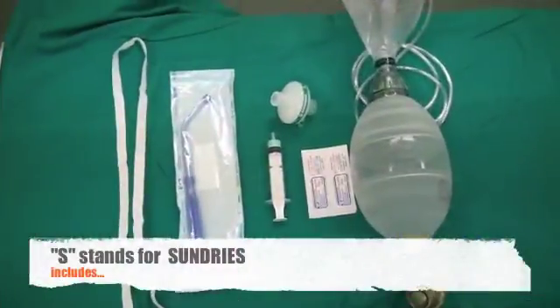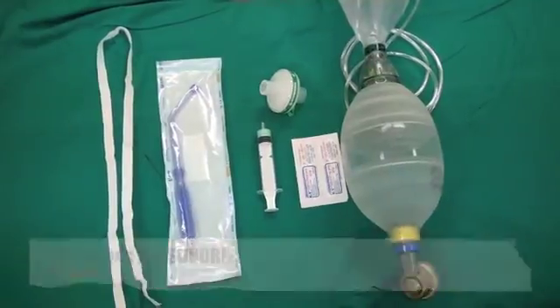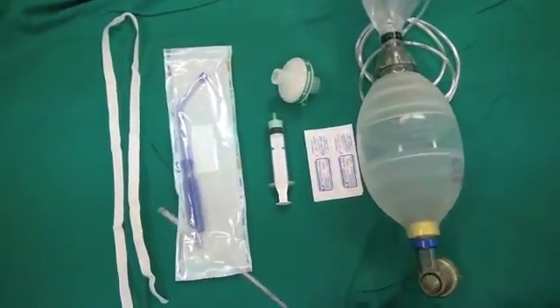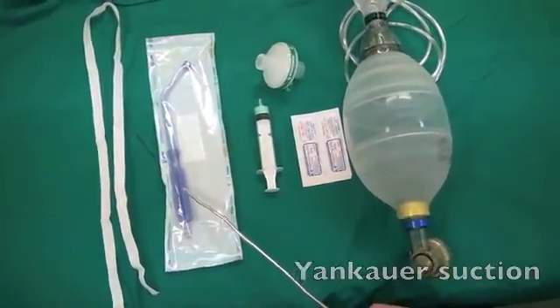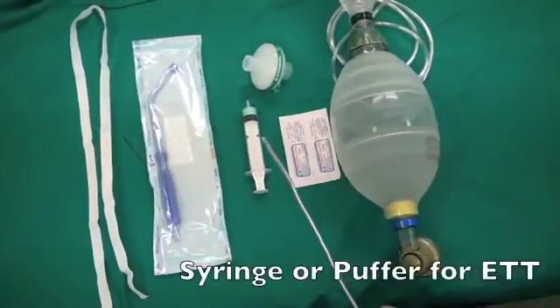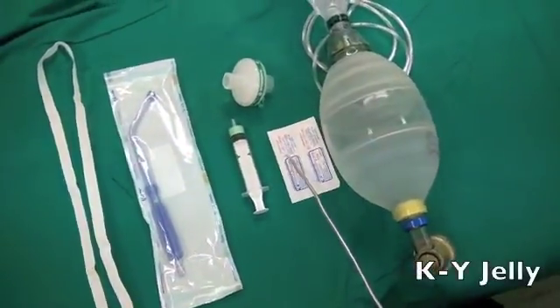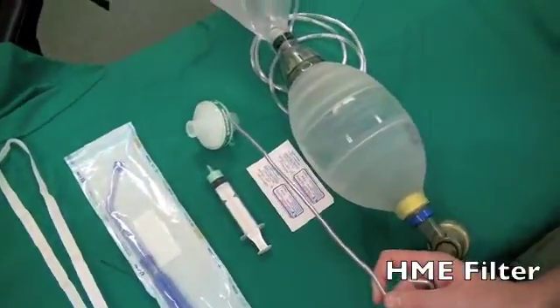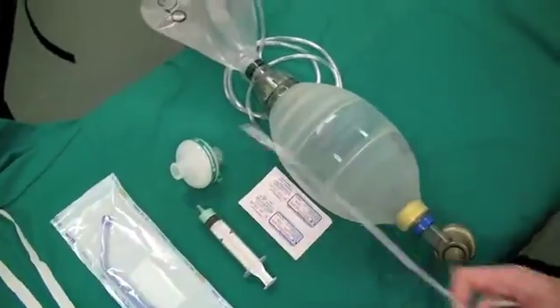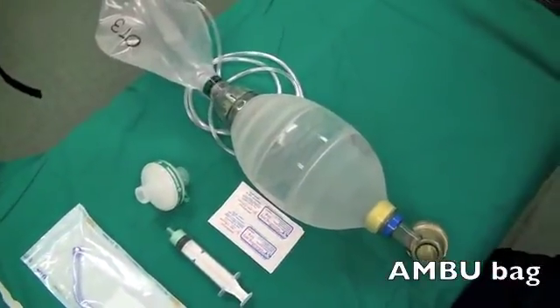S stands for sundries, which includes strapping, rigid Yankauer suction, syringe, KY Jelly, HME filter, and ambu bag.